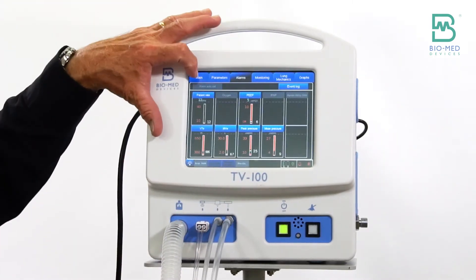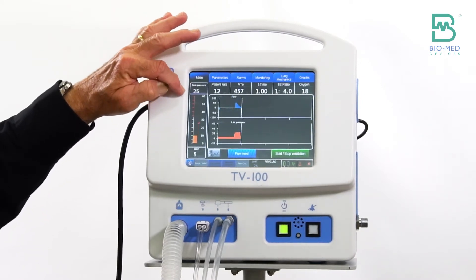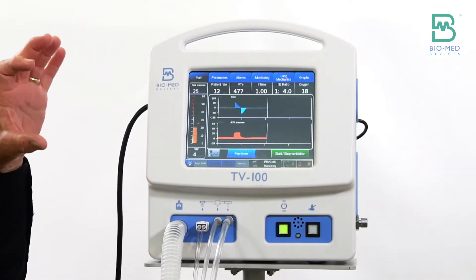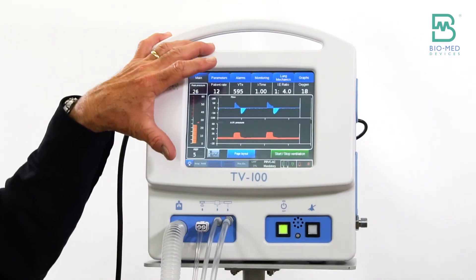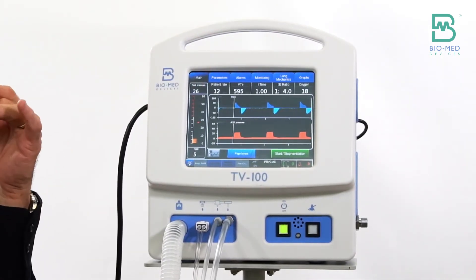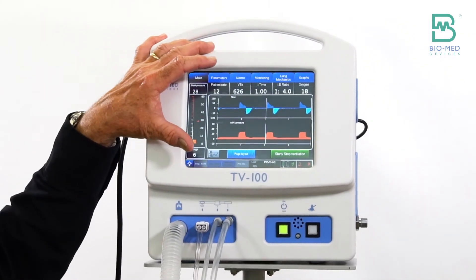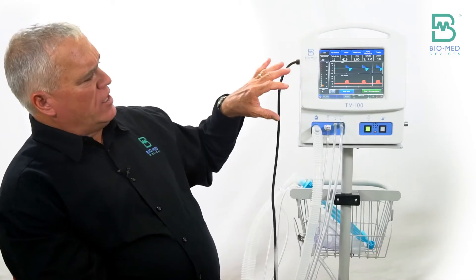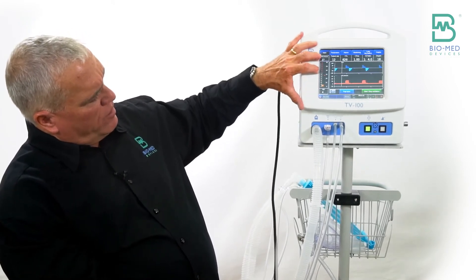So if I take it to 33, now 25 plus five is 30 — so I'm not within five, and I'm not going to get that PRVC alarm. If you ignore that PRVC alarm and the pressure persists, it will re-alarm every 30 seconds, so that you can actually have a better feel for where the patient might need to be with their pressure.